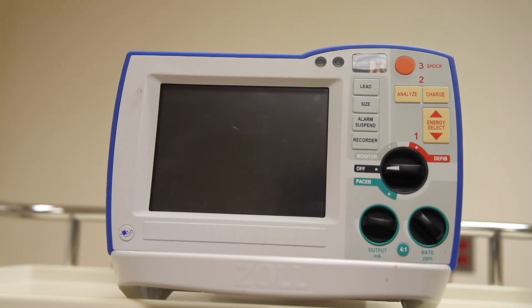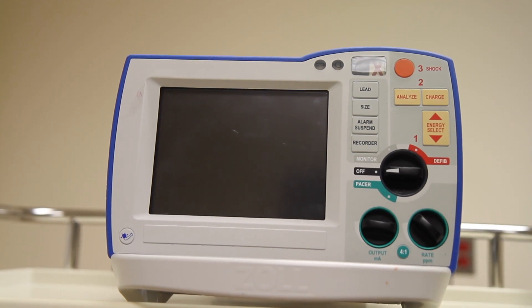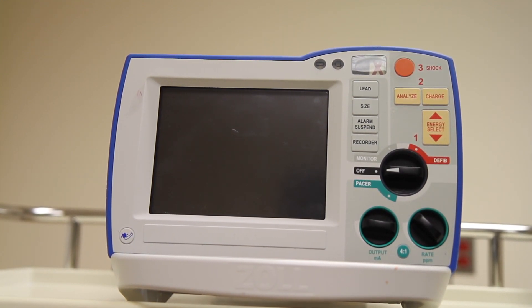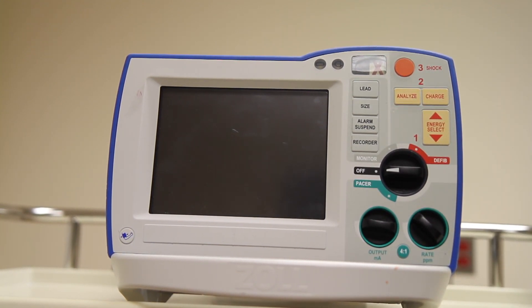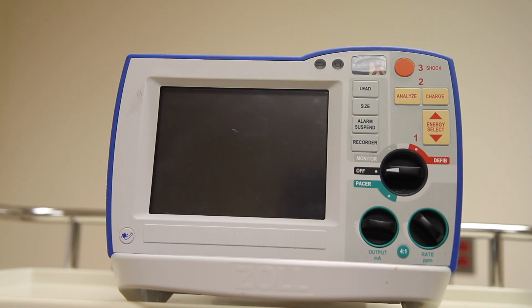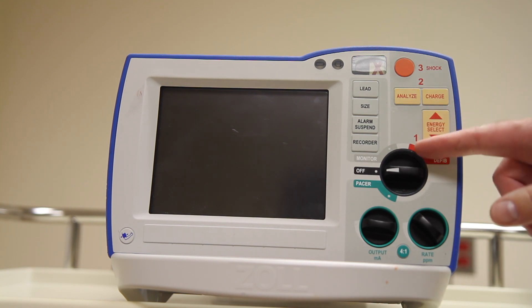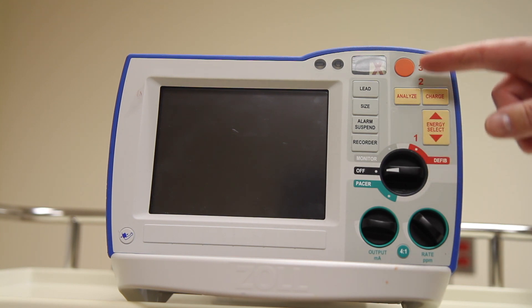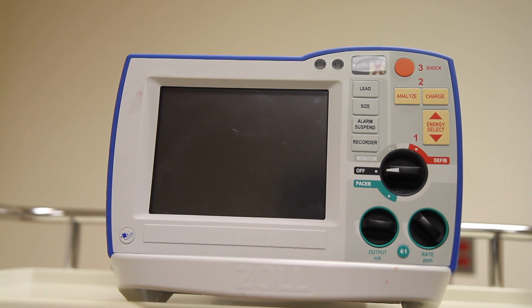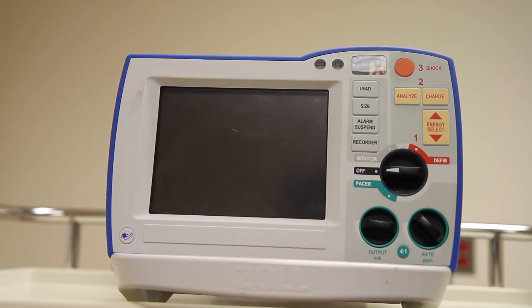Let's review the various buttons and dials that control the monitor defibrillator. They are clearly labeled, and in many instances they are also numbered one, two, and three to help guide you through the order in which they should be operated.